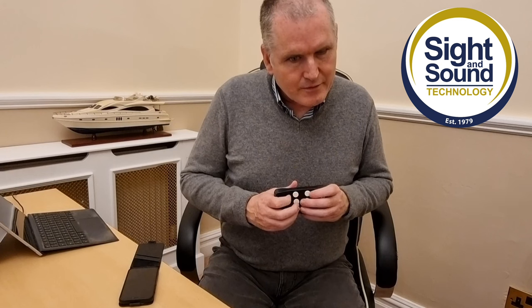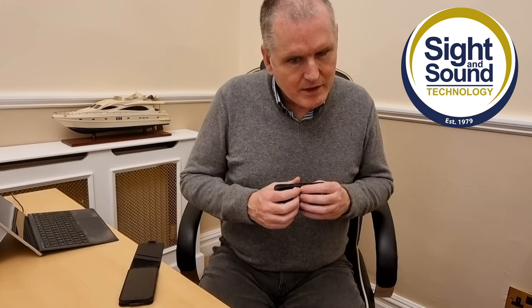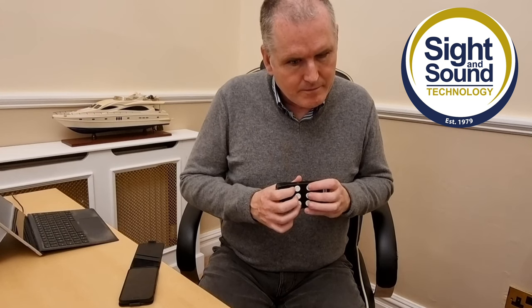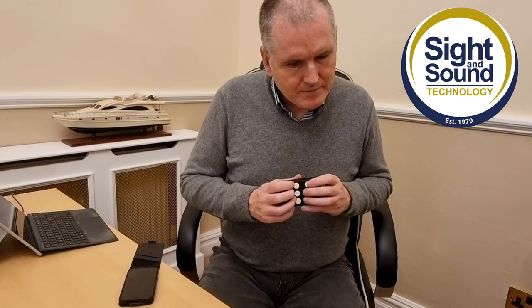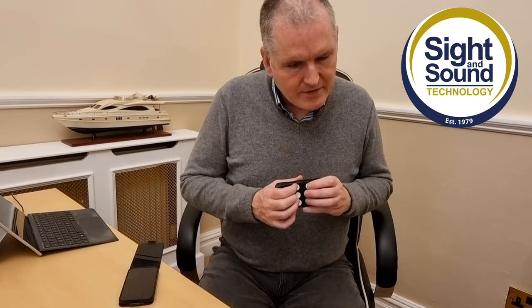I did that by pressing buttons 4, 5, and 6, and I'm now in my message field with the insertion point at the end. I'm going to start typing in contracted Unified English Braille. I'll read that back and I'll send the message.